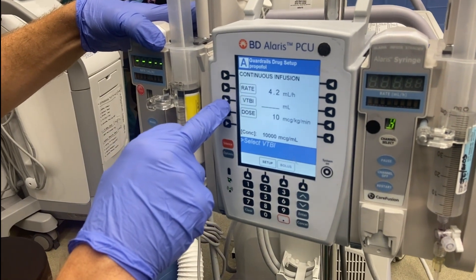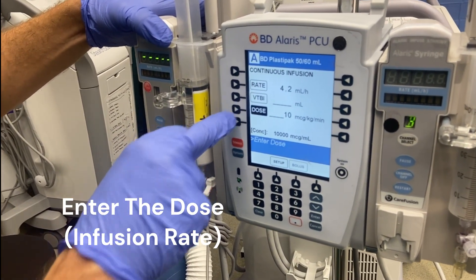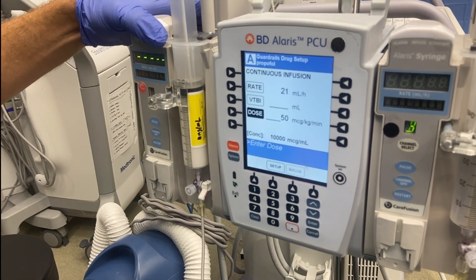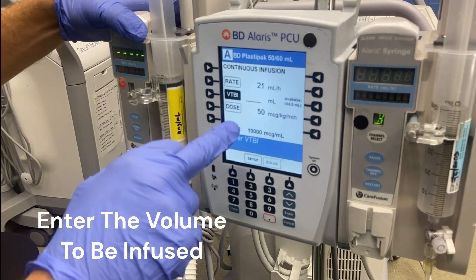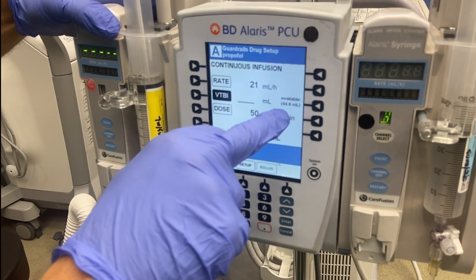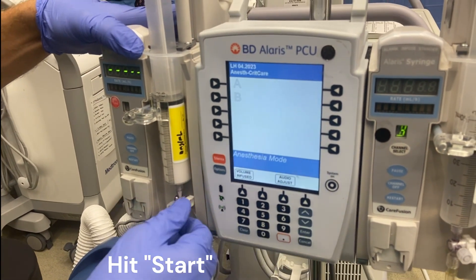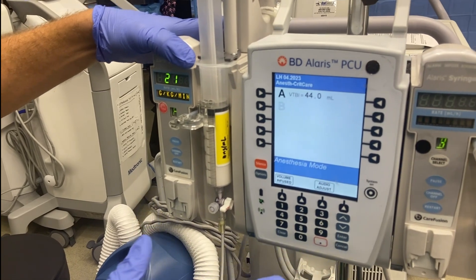This is the volume to be infused and the dose. So I'm first of all going to change the dose — let's say we would start at 50 micrograms per kilogram per minute. And then my volume to be infused — here it tells me that there's 44.6 milliliters available, so I'll just hit 44. Now I can hit start, and now this infusion is going.